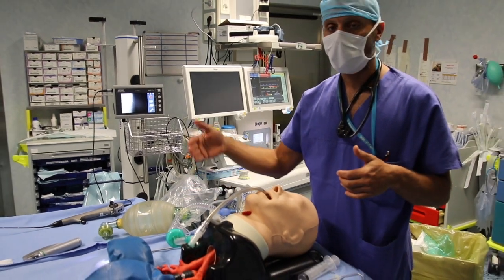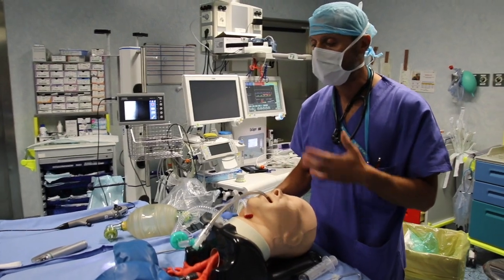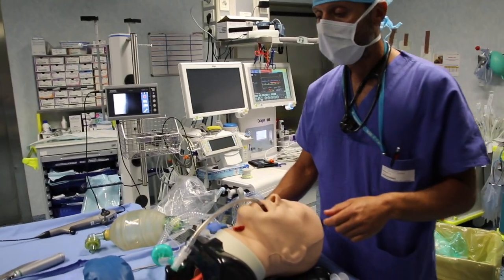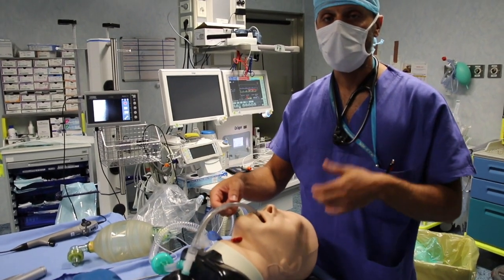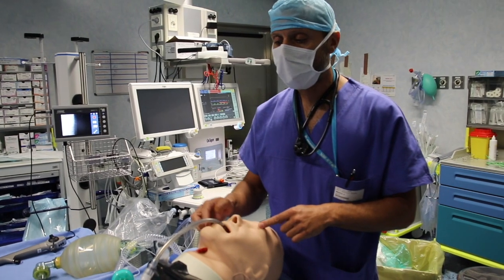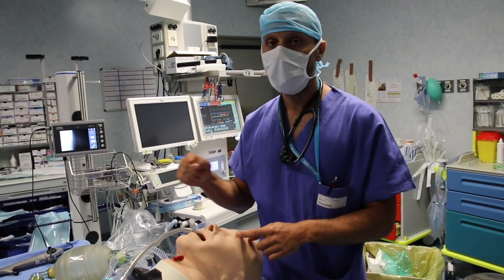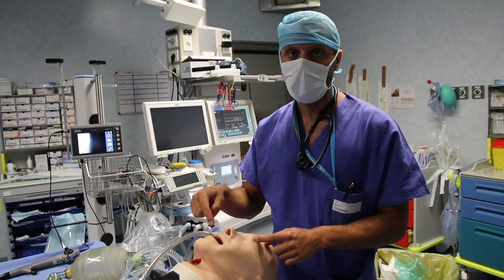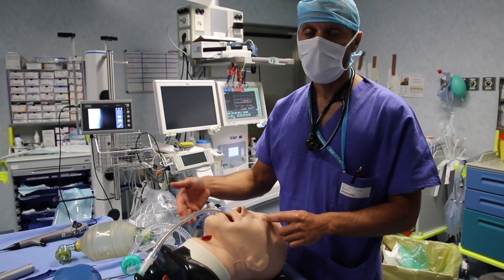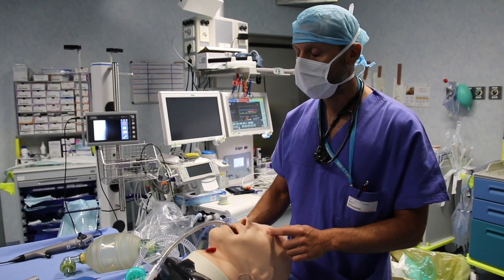The obvious implication of this advantage is that it gives the opportunity to train operators to improve and refine their video-assisted intubation skills, since this method has a notoriously higher learning curve. Contrary to all other supraglottic airway devices that don't allow the use of rigid video endoscopes, the Spritz tube is compatible with such instruments and allows their usage for both diagnostic and intubation purposes.